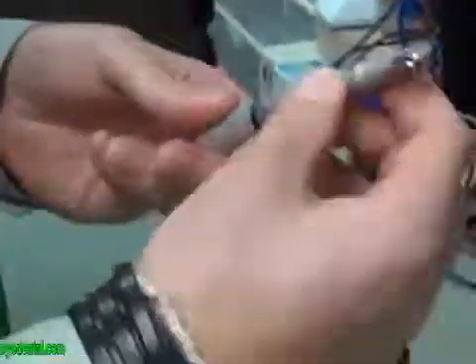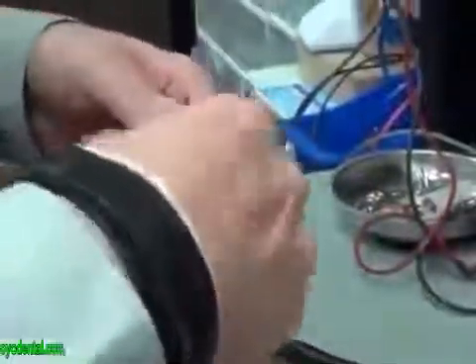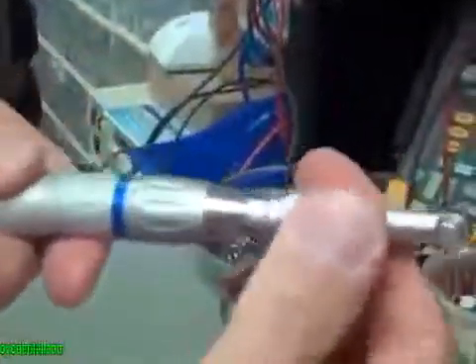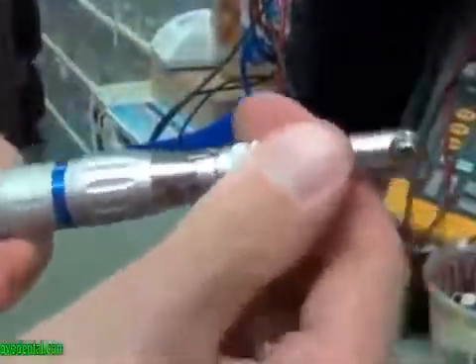Just go ahead and place it straight down until it can't go any further, and then lock the straight nose cone back into place. Now you should no longer be able to move the profi head or remove it.